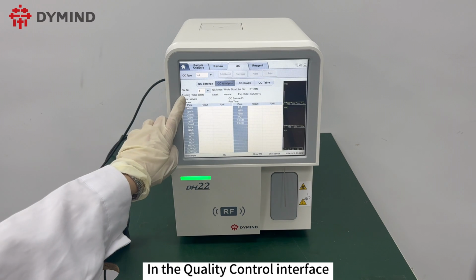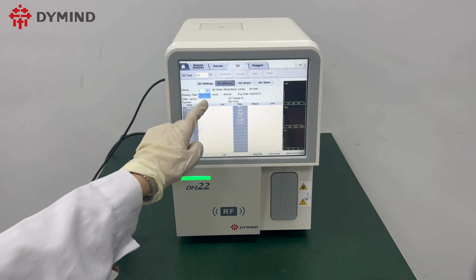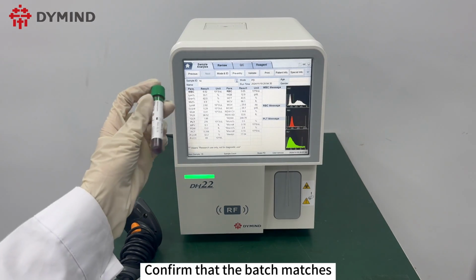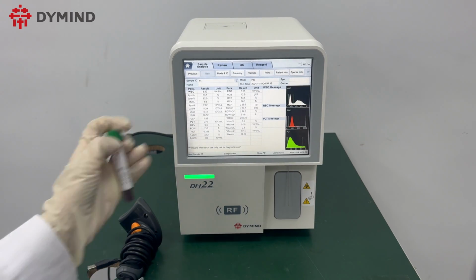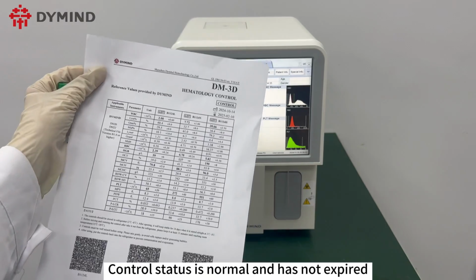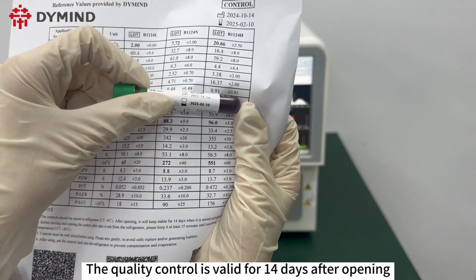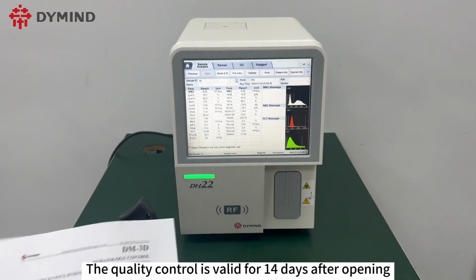In the Quality Control interface, select the quality control file. Confirm that the batch matches. Ensure that the quality control status is normal and has not expired. The quality control is valid for 14 days after opening.